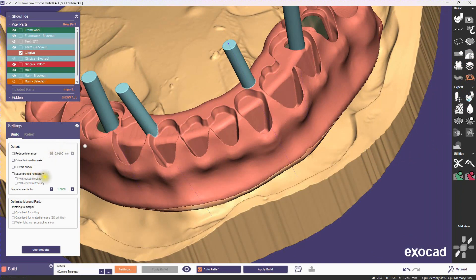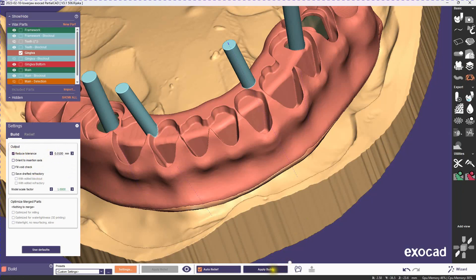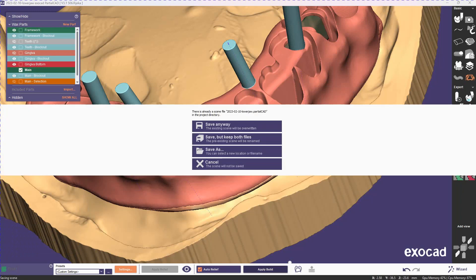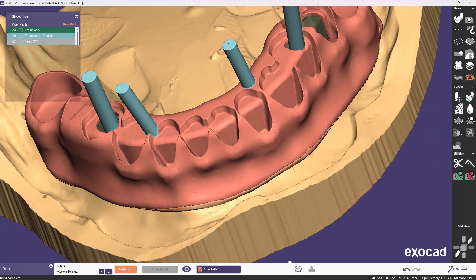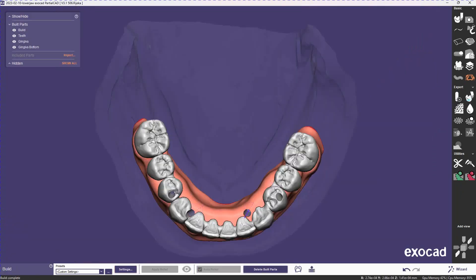Let's wrap it up with save for build. Reduction does take a little bit longer, but it makes the files much smaller, so I'm just going to do that here. So there we are.